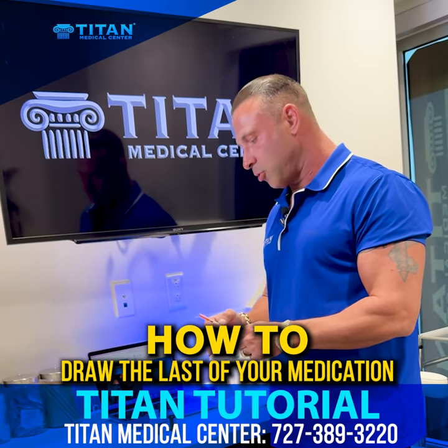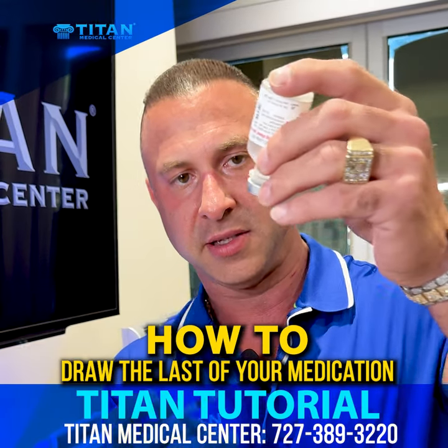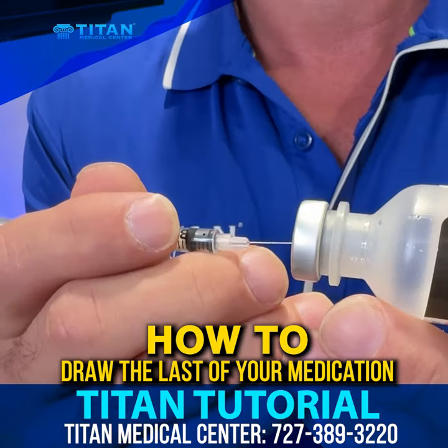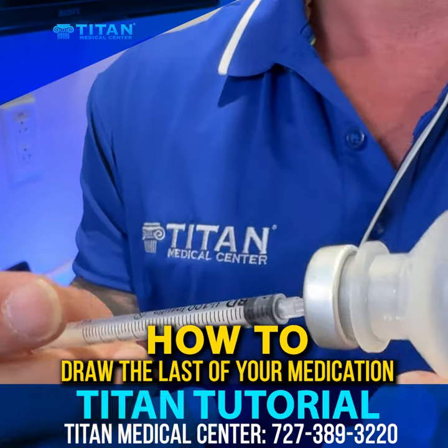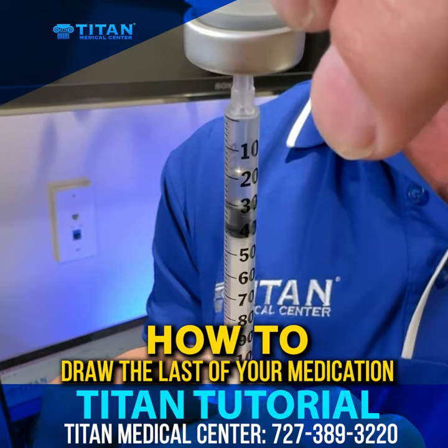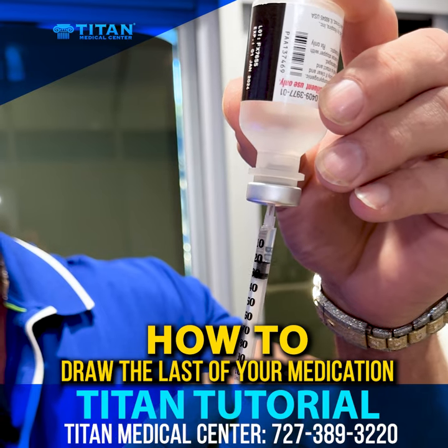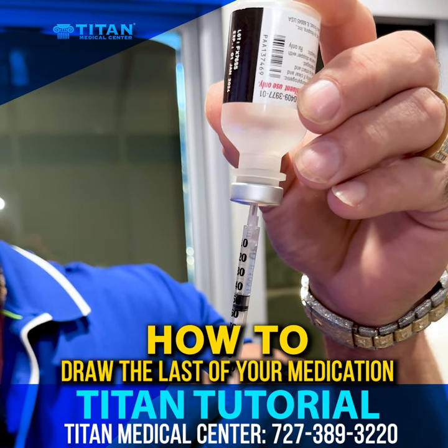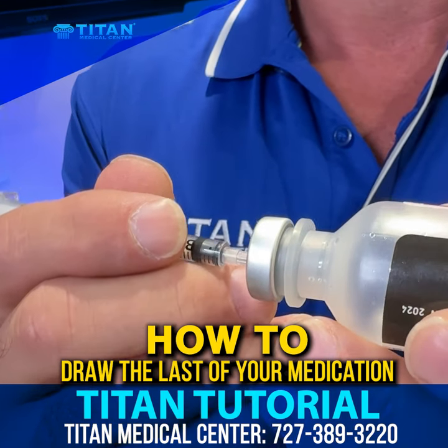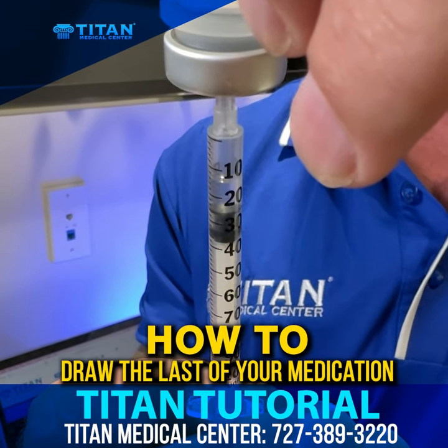So the first thing we're gonna do is pull with the insulin needle. You're gonna grab the vial — usually people will flip it upside down, some people draw from the bottom. The best bet is to turn it to the side, that way you can see the needle go directly inside the center of the cap. The biggest mistake people make is they put the needle all the way in. Now if you try to pull the liquid, it might not pull that much, because as you're pulling, the liquid goes down and now your needle is on top of the liquid. So you drew a little bit but didn't get all of it because now it's all air.